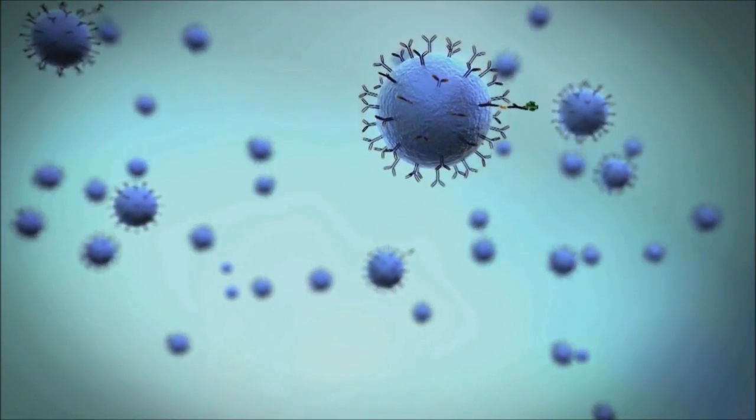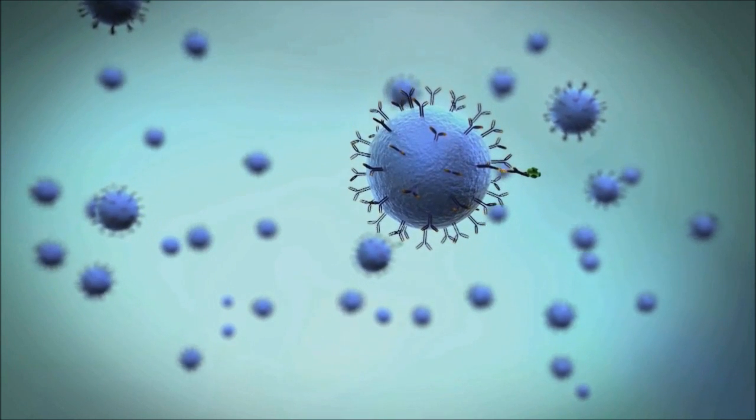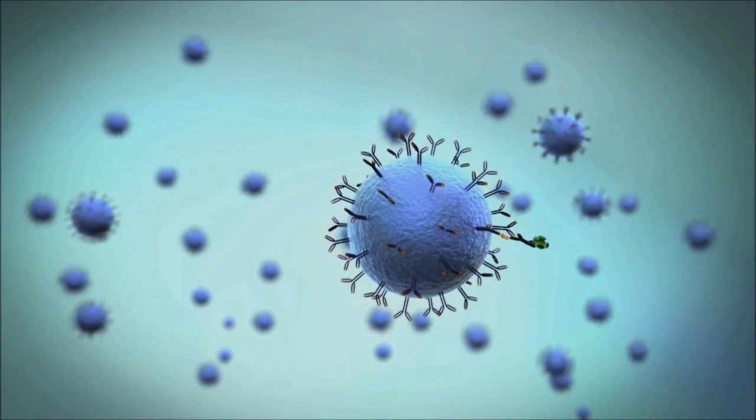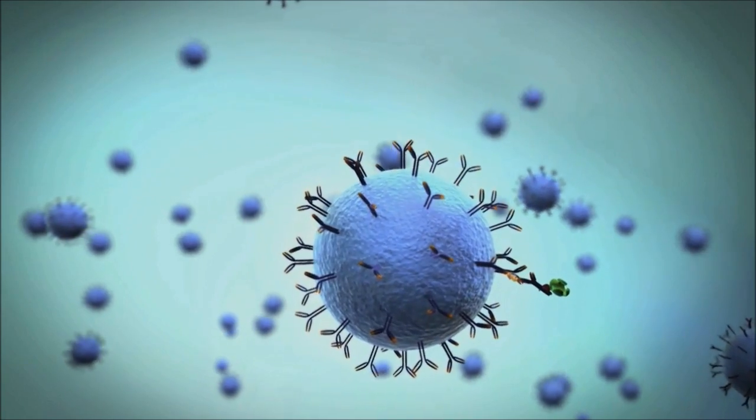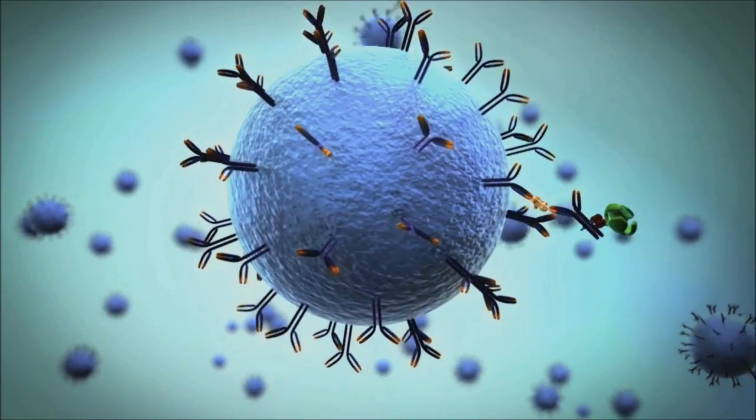Beads are subsequently concentrated by magnetic separation and washed to minimize background. At low concentrations, each bead will contain either one bound protein or none.